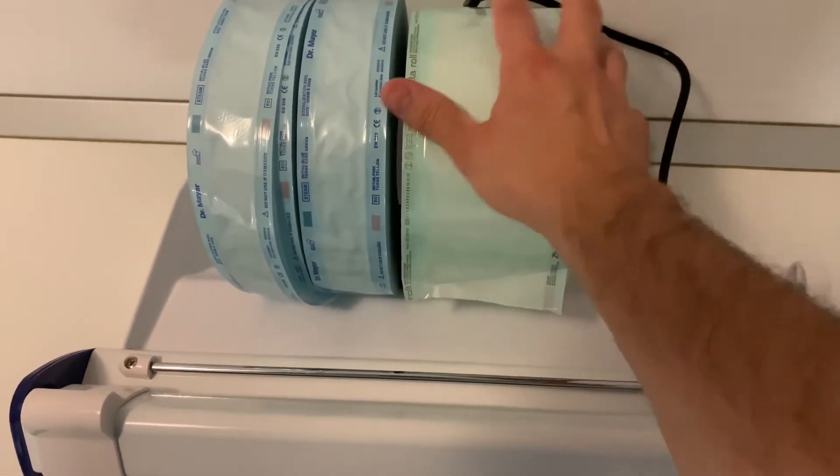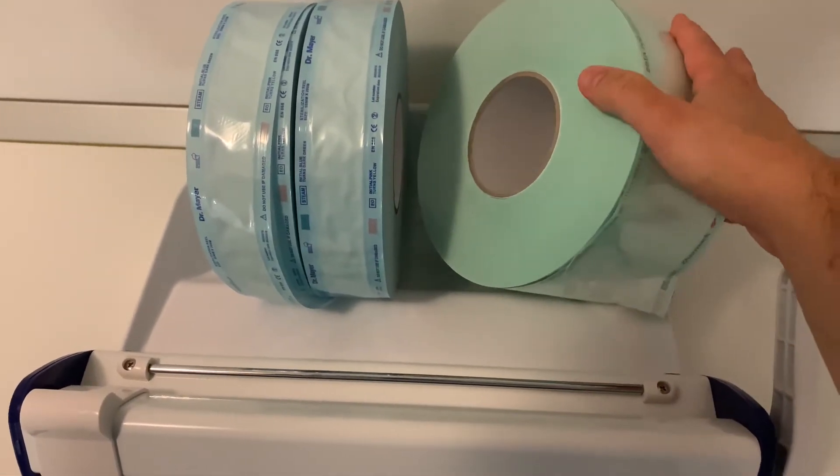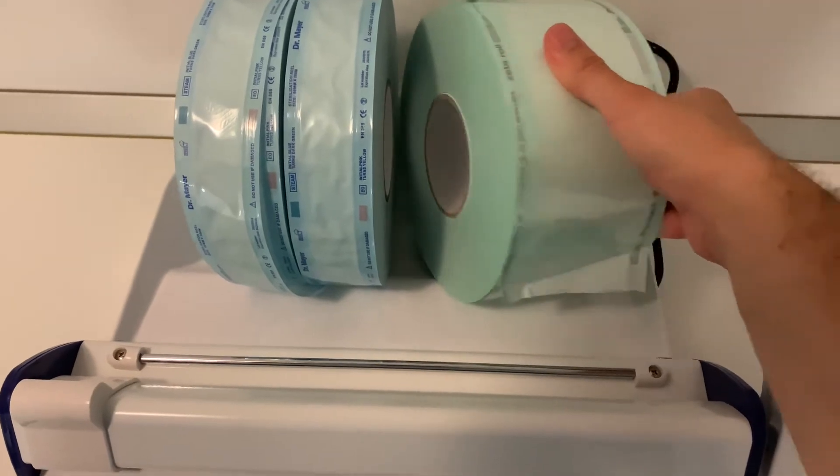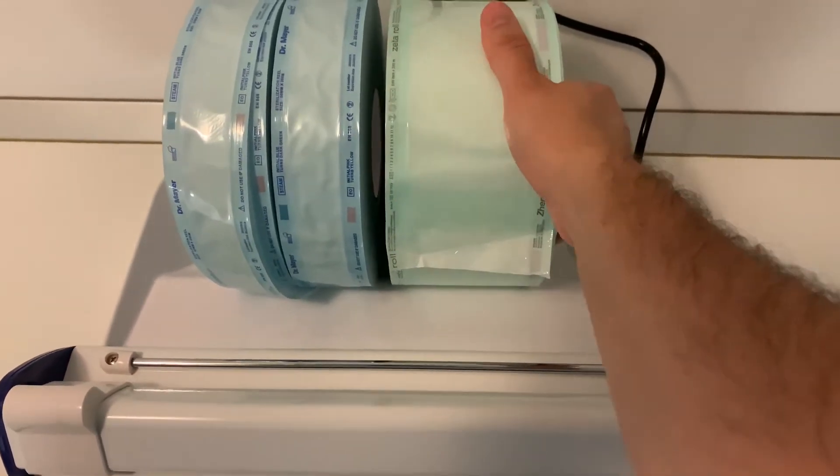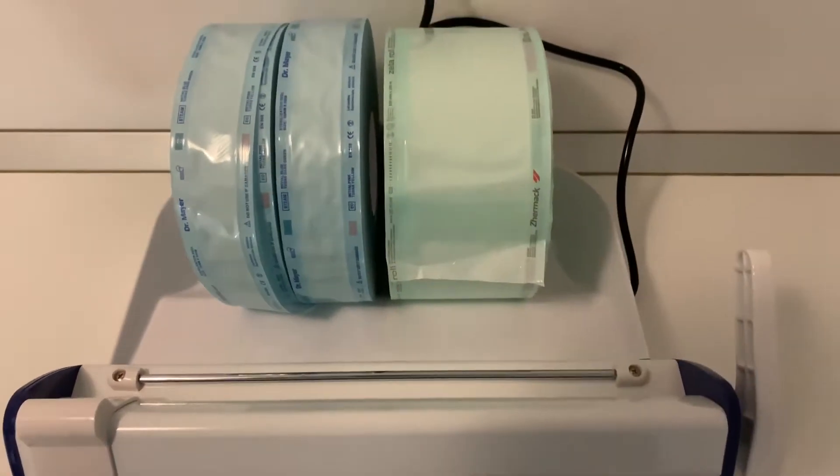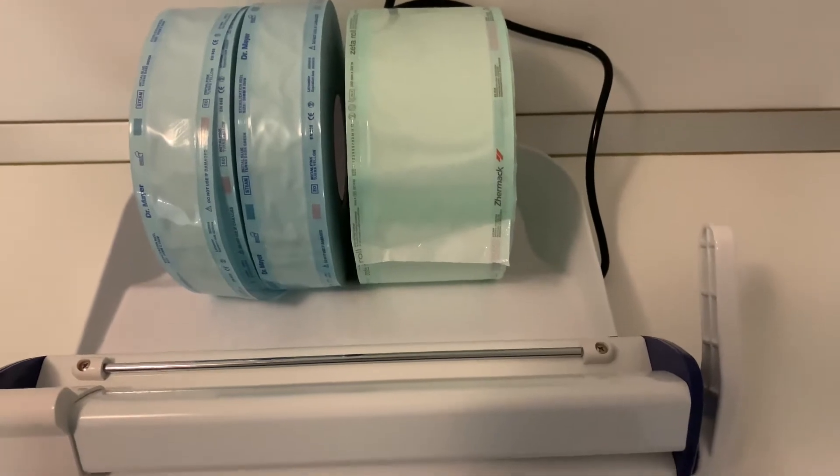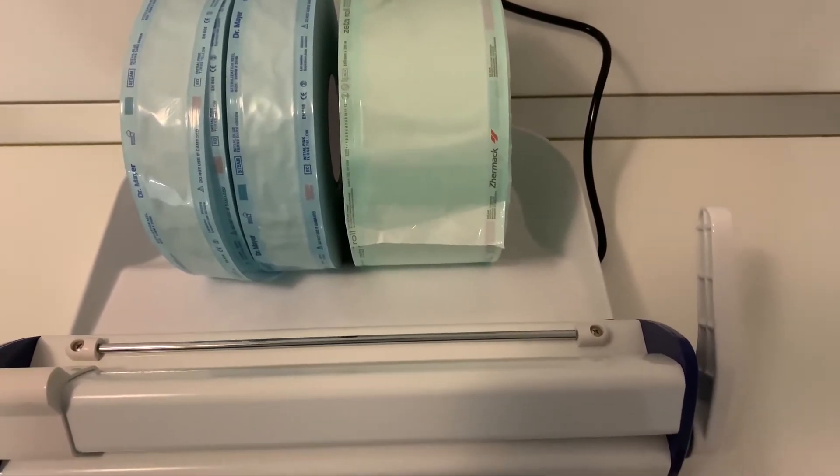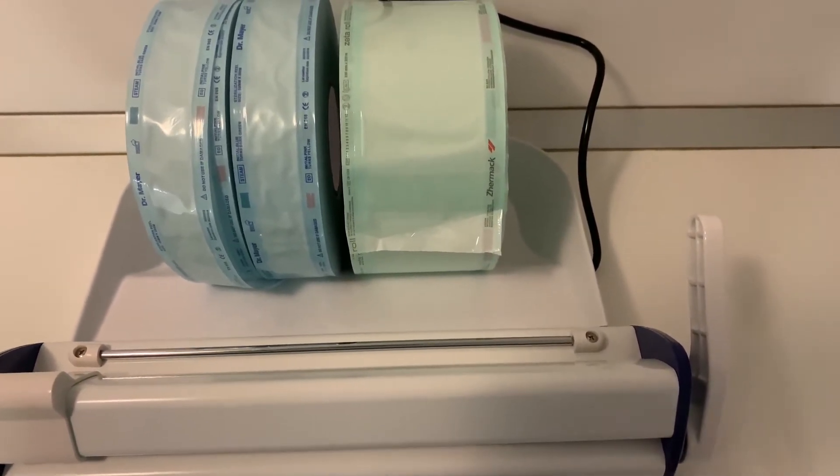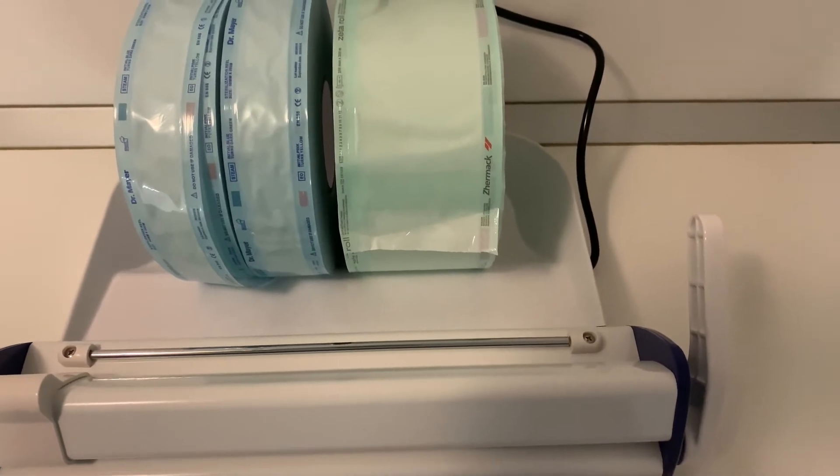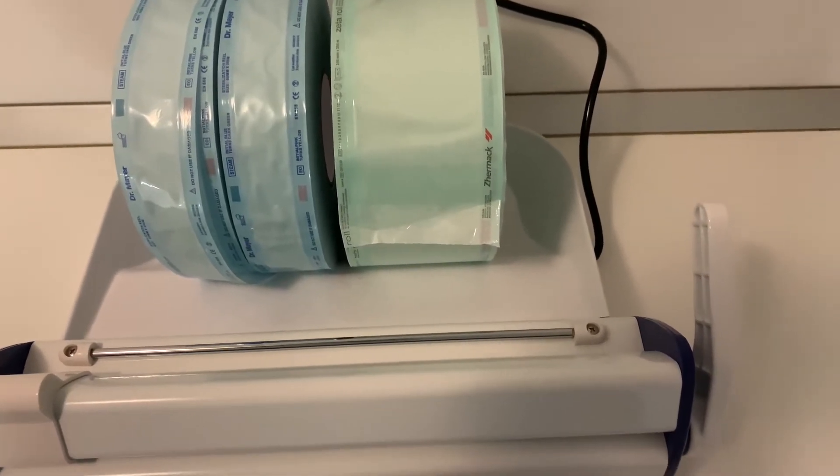As usual in these cases, the total length of this roll is 200 meters. That means you'll get about 800 individual pouches for normal size 25 centimeters.